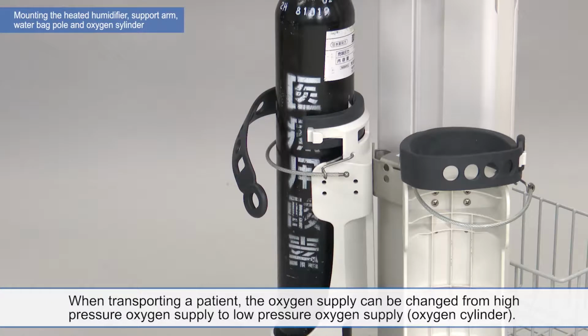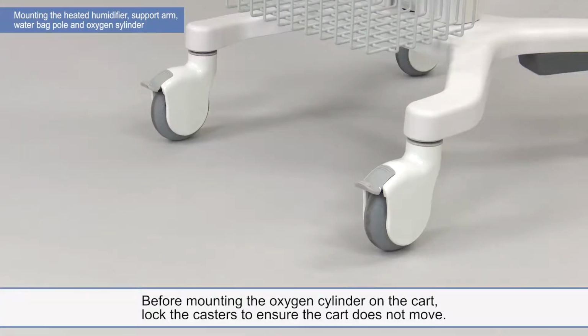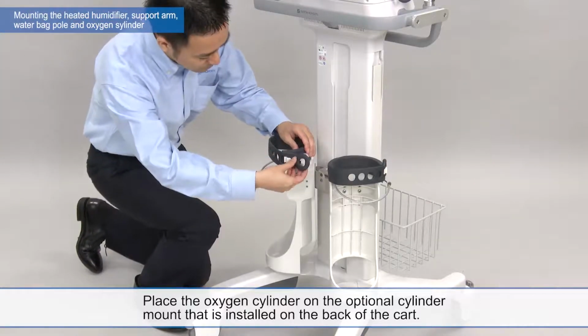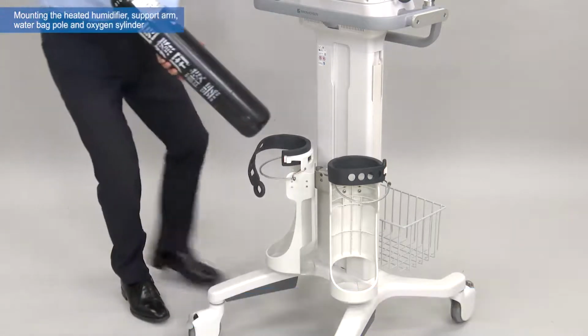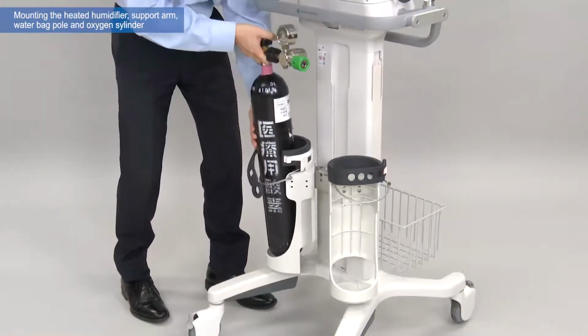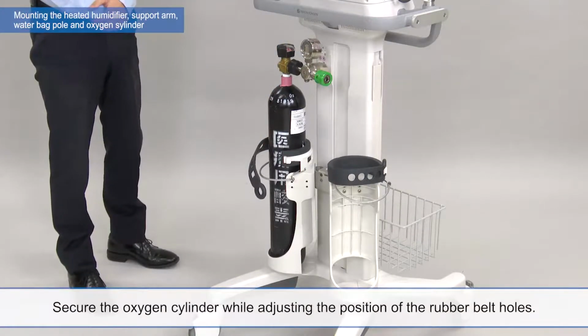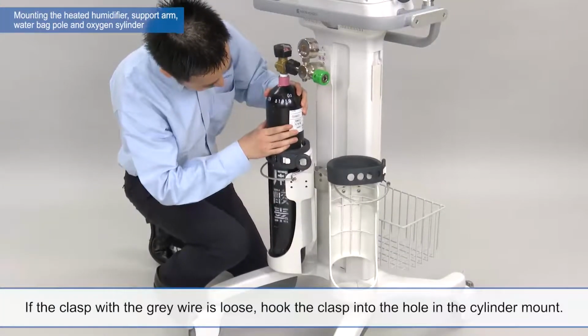When transporting a patient, the oxygen supply can be changed from high-pressure oxygen supply to low-pressure oxygen supply. Before mounting the oxygen cylinder on the cart, lock the casters to ensure the cart does not move. Place the oxygen cylinder on the optional cylinder mount that is installed on the back of the cart. Secure the oxygen cylinder while adjusting the position of the rubber belt holes. If the clasp with the gray wire is loose, hook the clasp into the hole in the cylinder mount.